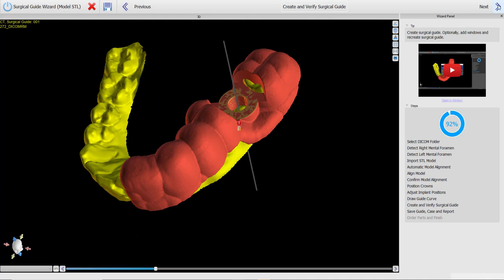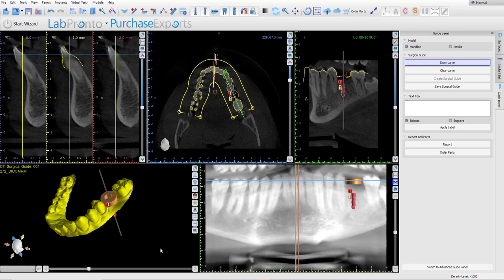So to finish the process, you would just click Next and finish the final steps of the wizard. Normal mode works very similar to the wizard and very similar to how it worked in older previous versions.